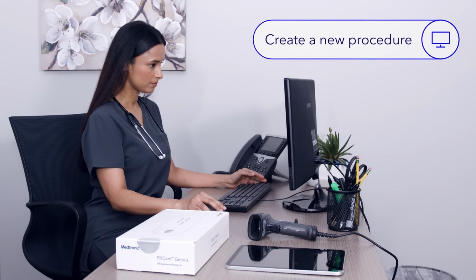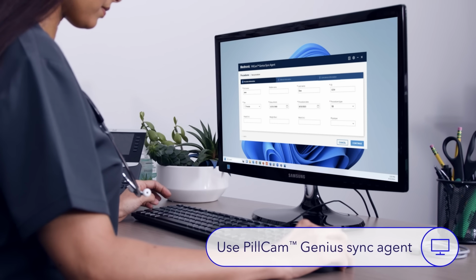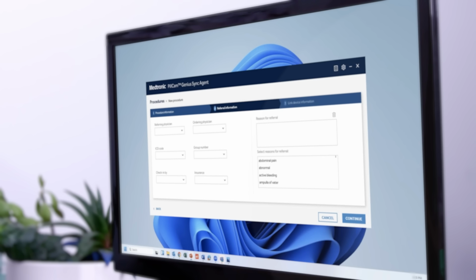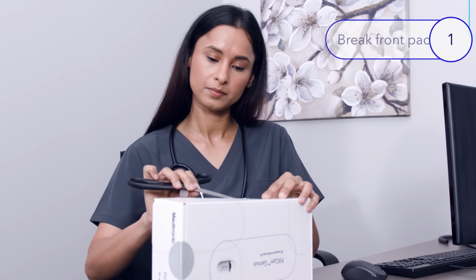The preparation for a PillCam Genius SB capsule endoscopy procedure begins with creating a new procedure on your workstation. You'll use the PillCam Genius Sync Agent. The PillCam Genius Sync Agent will walk you through 3 screens to enter relevant patient, procedure, and kit information. After completing the first 2 screens, the final step is to add the kit information. You can do this easily by scanning the QR code located under the front flap of the packaging.